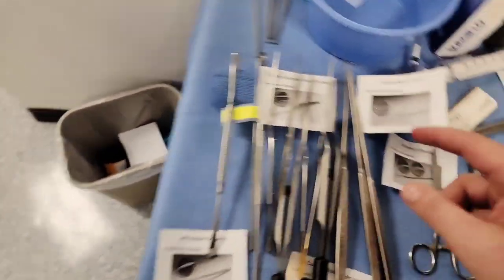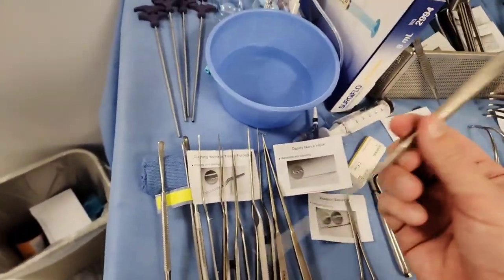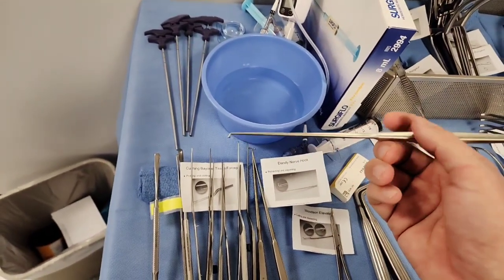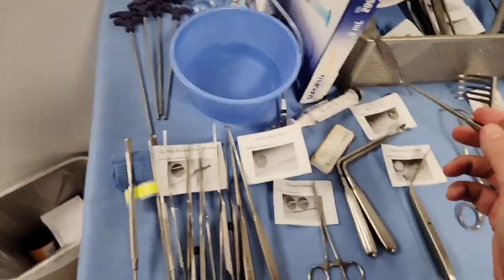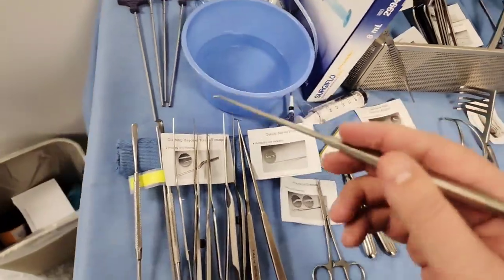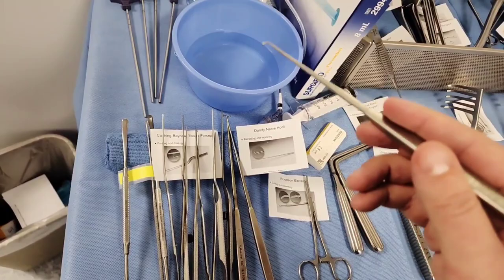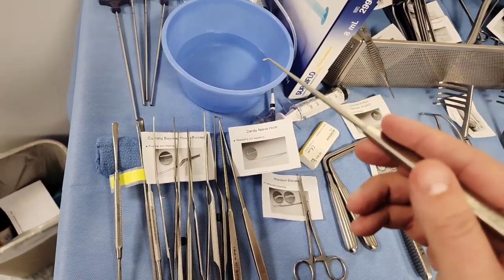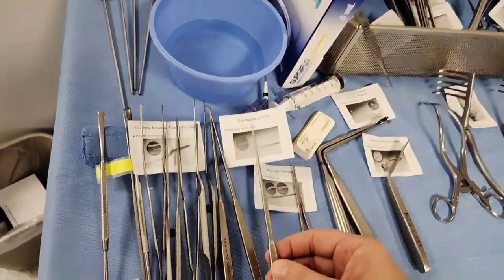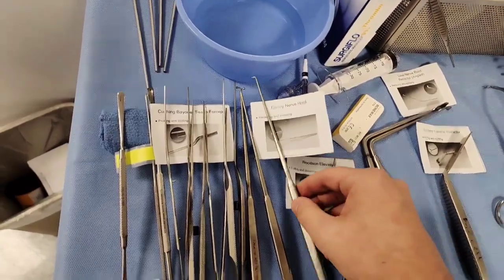Here's a Dandy nerve hook — it's so dandy. What is a nerve hook? Just like the Love retractor, a Dandy nerve hook is a little bit more fine, allowing you to get in there and isolate nerves and push them back a little bit. That's the Dandy nerve hook.